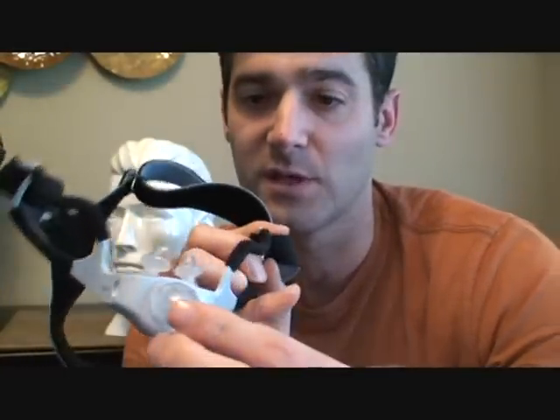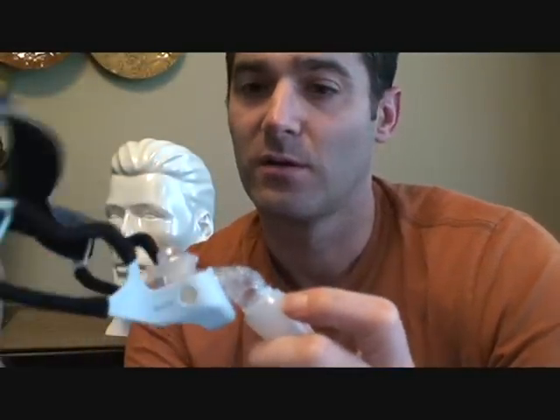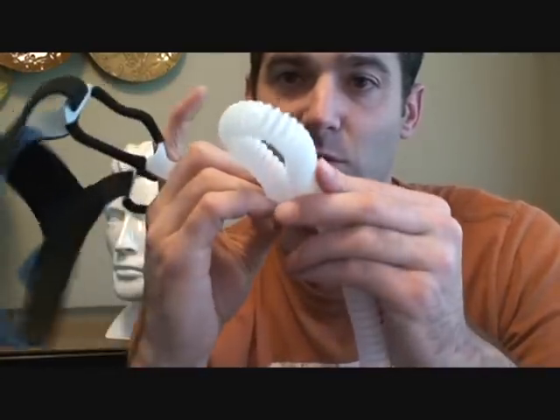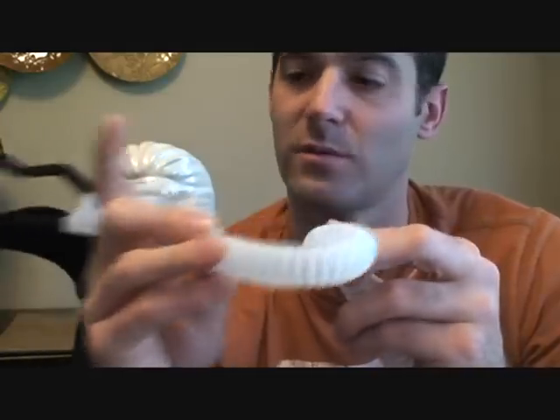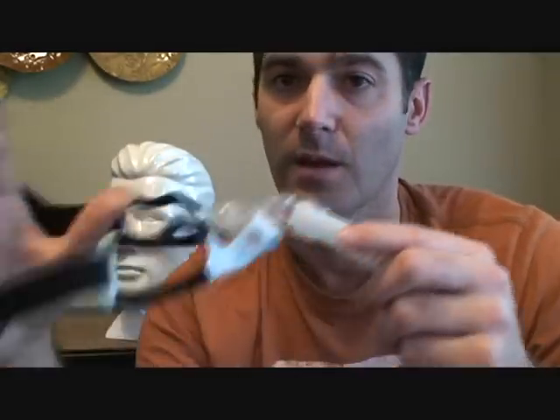If you have any questions, feel free to send me an email. Hopefully that helps. This is a pretty decent mask. The diffuser is nice and quiet, but the tubing isn't as flexible as the ResMed FX though. But it shouldn't be a problem — not a bad mask.